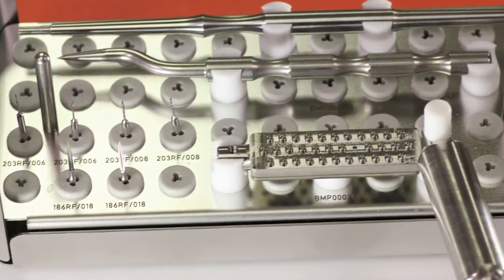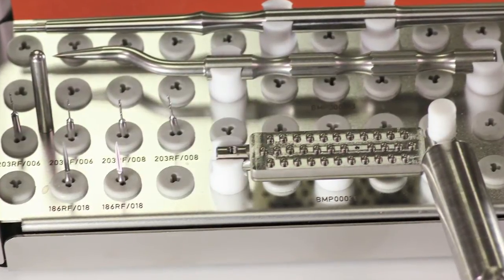The Meisinger Master Pin Kit was developed with the aid of Dr. Istvan Urban in Budapest, Hungary.